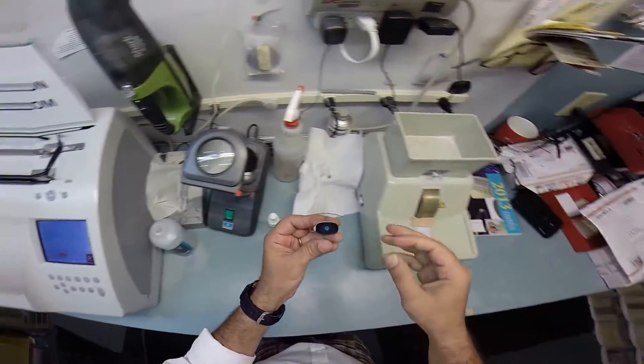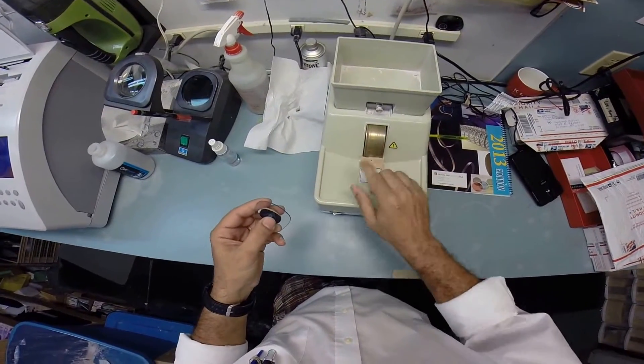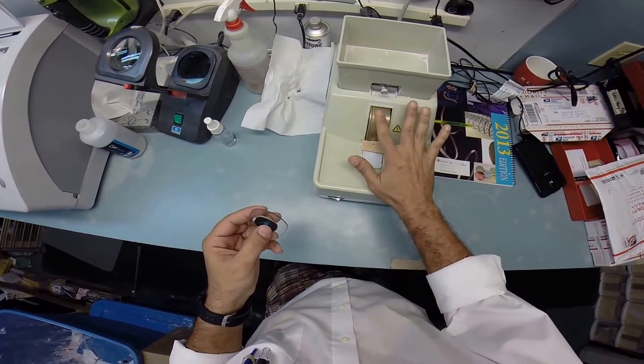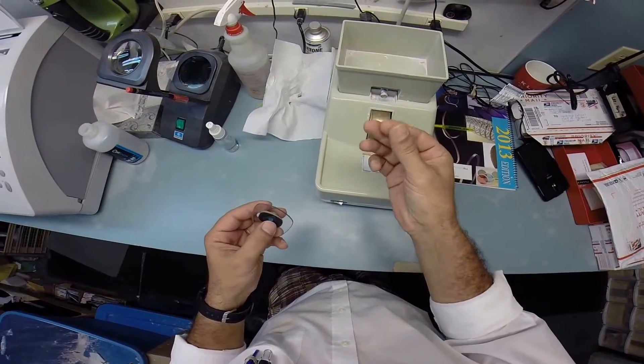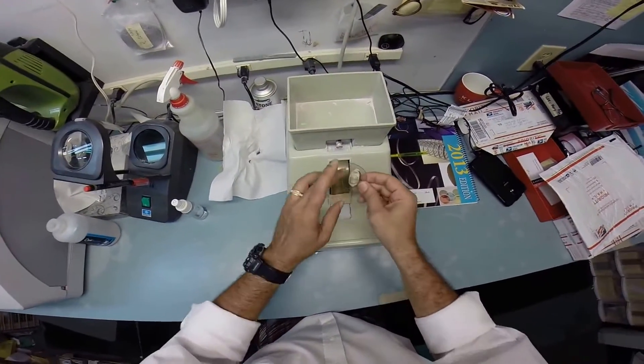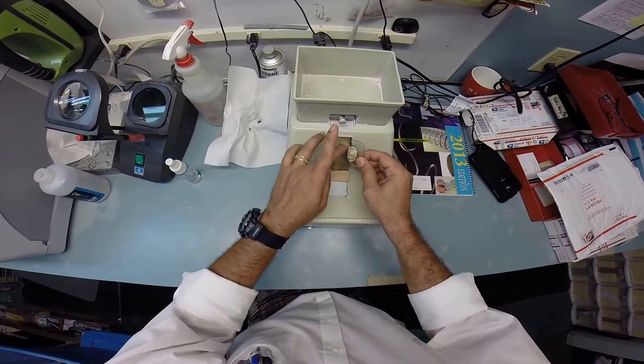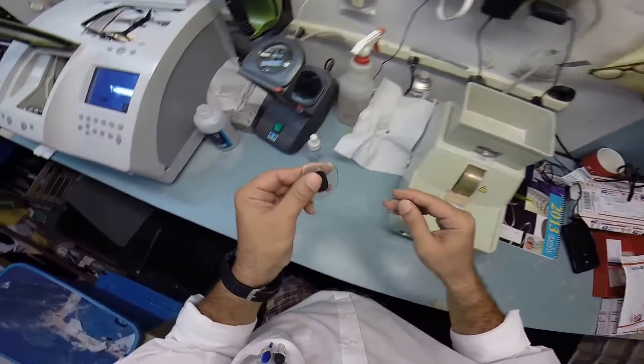I'm going to remove those rough edges using my hand stone. It's completely flat - I can put my finger on it while it's running and my finger gets warm due to the friction. But it's that friction that allows me to apply what's known as the safety bevel. I've just melted away those rough edges.